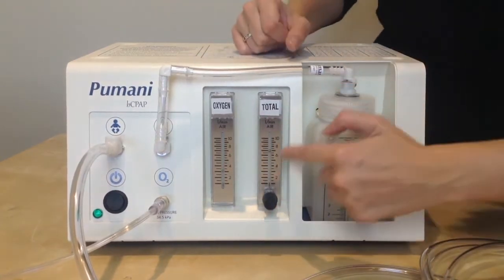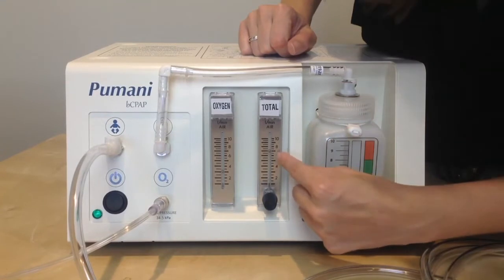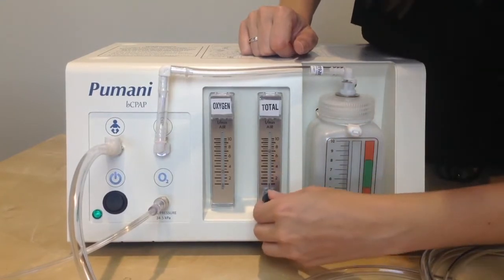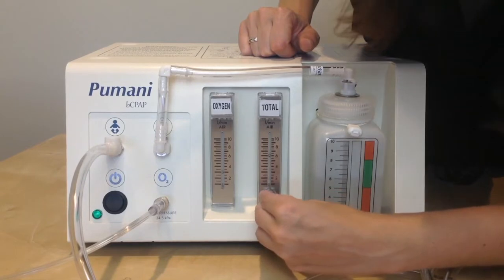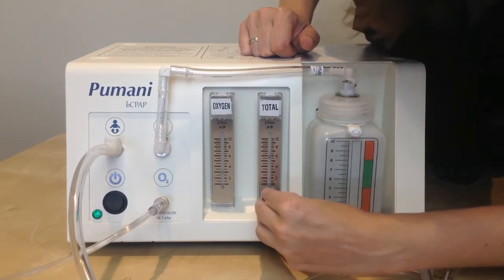Next, I will set the total flow. This should be six liters per minute, so you will need to increase or decrease until you're at six liters.